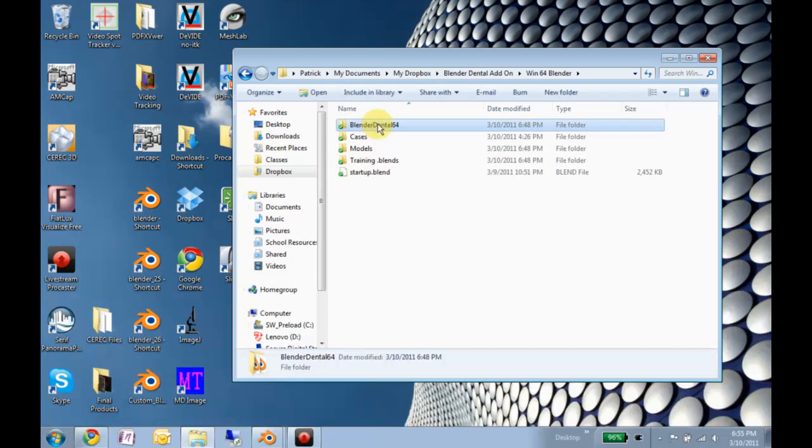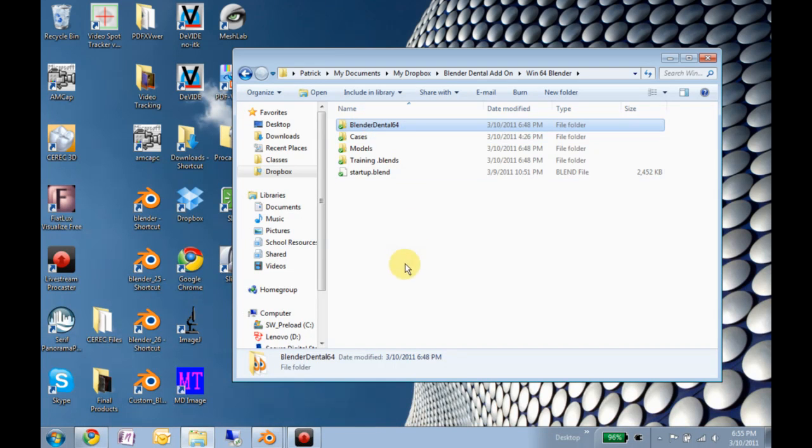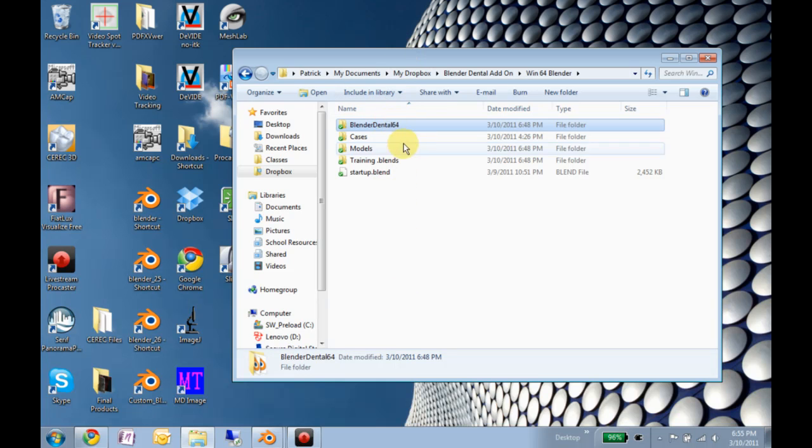I'm probably going to be making an update to the add-on every once a week or so. This will allow me to just push the new version straight into your add-ons folder, which is in here.